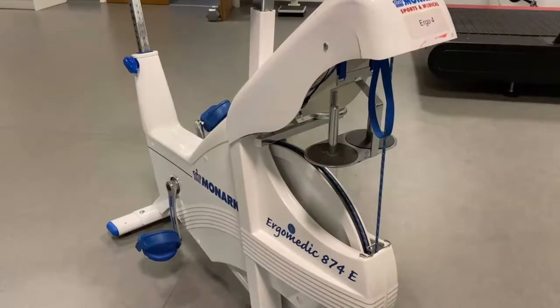On a traditional exercise bike, workload is increased or decreased using buttons or a dial, whereas here workload is controlled by cadence and by calibrated weights placed in the suspended carriage to apply tension to the rope.